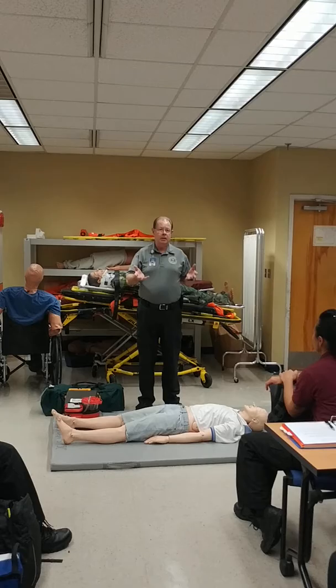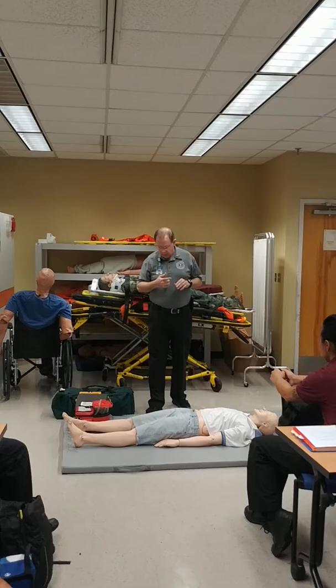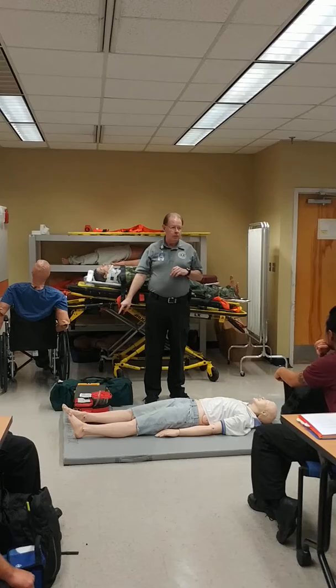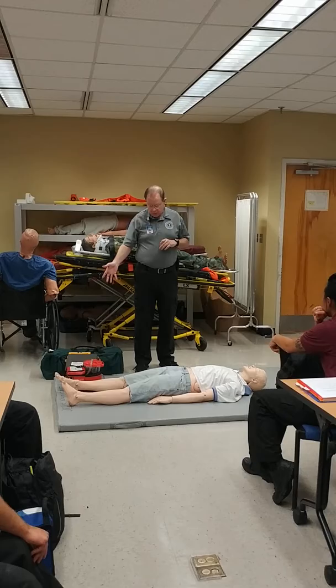For civilian use, the AED gives a countdown — shocking in three, two, one, or something like that. The biggest thing we need to remember is that the person pushing the button is responsible for making sure everybody's clear. And your eyes are on the patient, not on the machine, when you push the button.